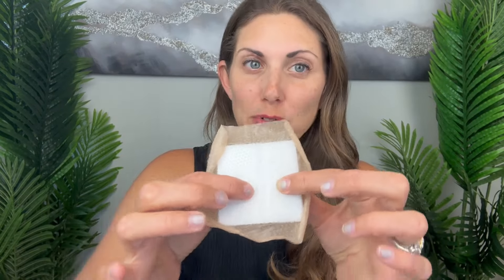If I show you my arm, you can see water droplets on the outside of it - kind of hard to tell, but there are water droplets. Here on the inside, this area was able to absorb some of what I had originally put as my fake wound, but it's still sticky. I did just apply it, but it kept my whole area that would have been the wound totally dry in that center.